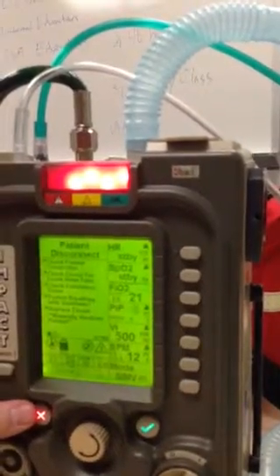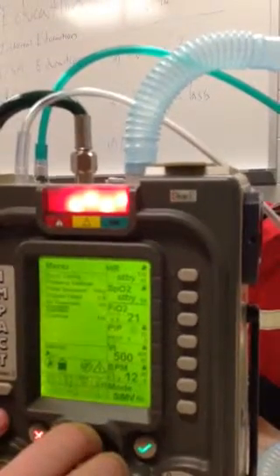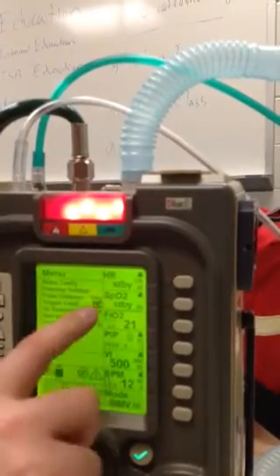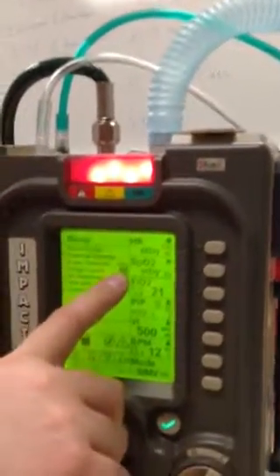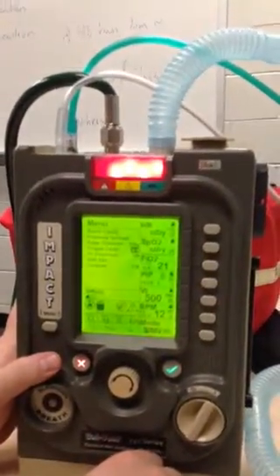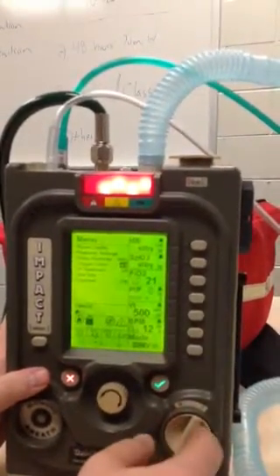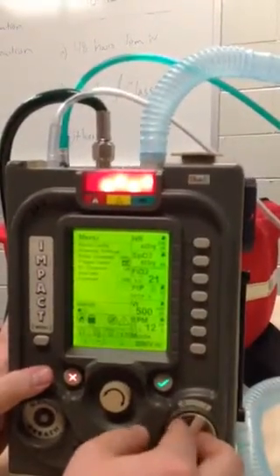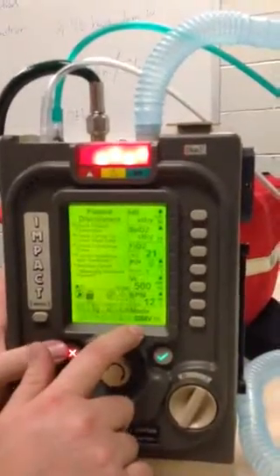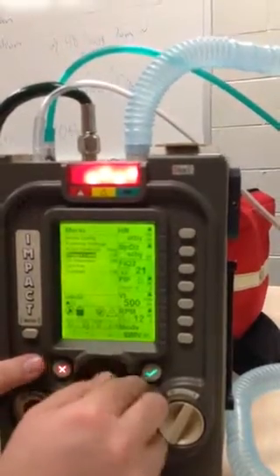Anything else you can think of for the quick setup? The trigger: go to the menu button, go to trigger level, enter, and then the more negative you go, the more it takes to trigger for the next breath. Okay, so that means if you're bouncing down the road and the ventilator believes it's time to take a breath, it's going to give breath, breath, breath, breath. And if you increase your trigger level, correct. It's more apt to happen in assist control mode. There's your trigger level.